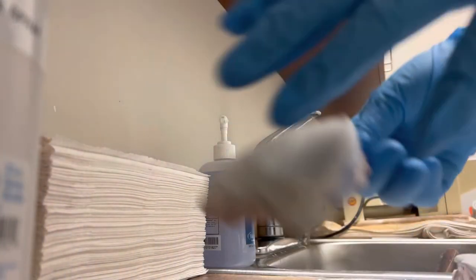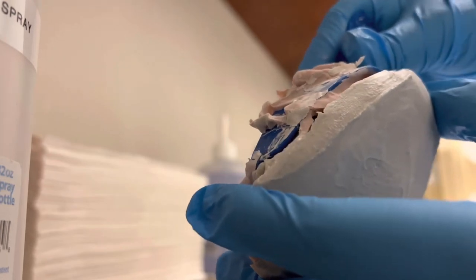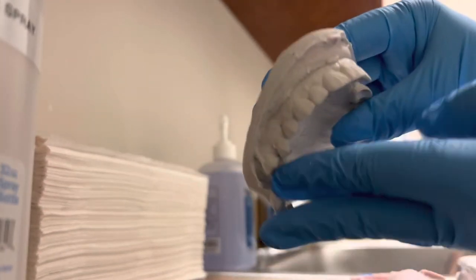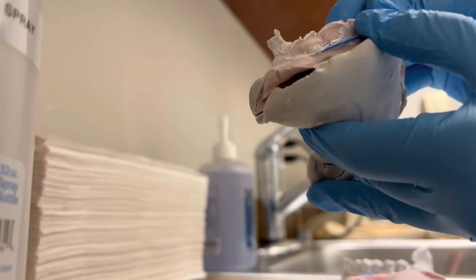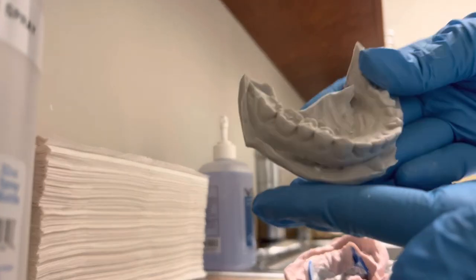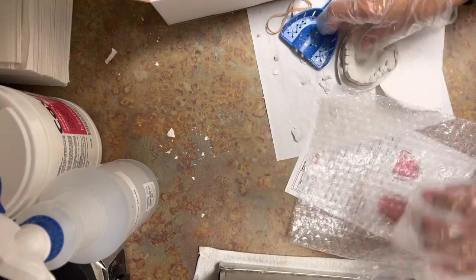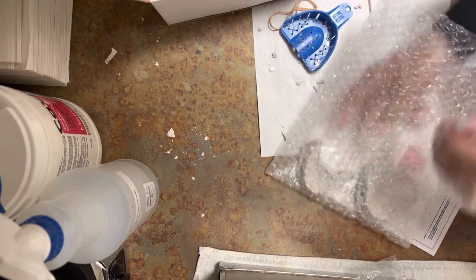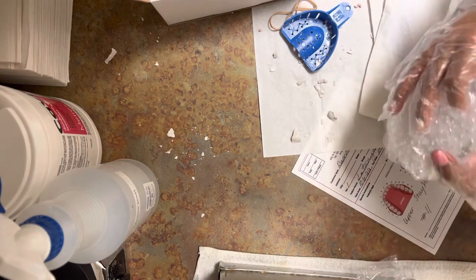It has been two hours, so I'm finally going to break this apart — just watch how nicely it comes apart. No air bubbles at all. I am so proud of myself. So now I am going to be shipping this out. I'm going to get a bubble wrap bag and put the impressions inside one by one, setting them away from each other. We don't want them to break, so it's very important that we always protect them when sending them out. I'm just going to fold it and tie it up with a rubber band.